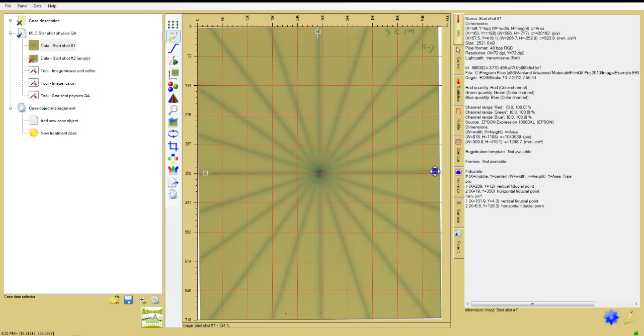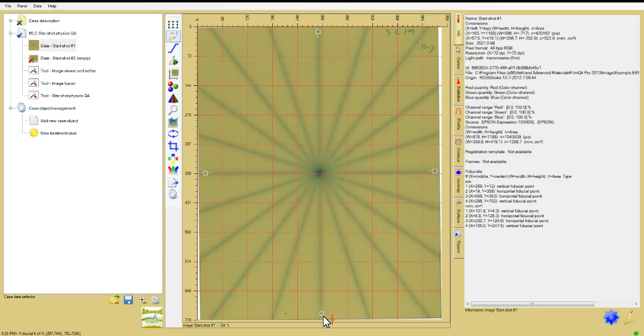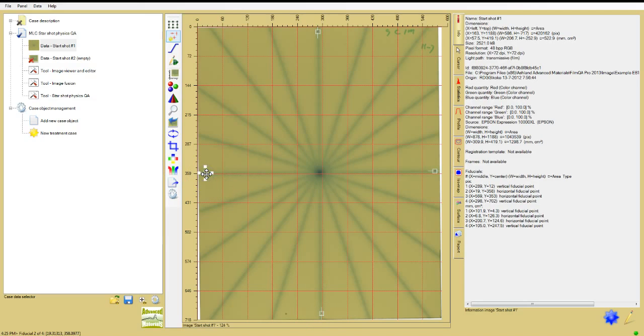The highlight marks appear. The fiducial fitting will be done using the center of the highlight marks, not the marks scribed on the film. For precise alignment, click on a highlight mark, hold down the control key, and use the keyboard arrows to move the mark.